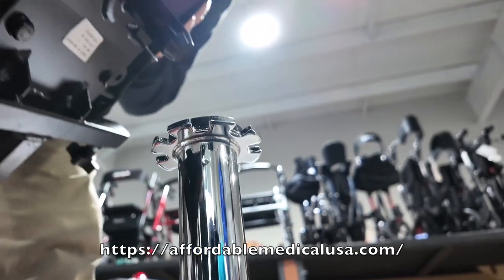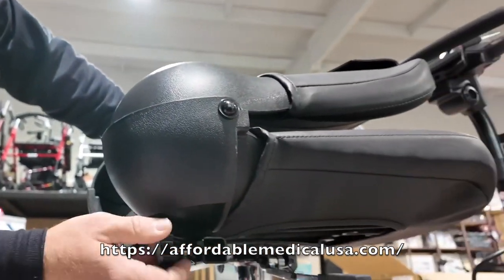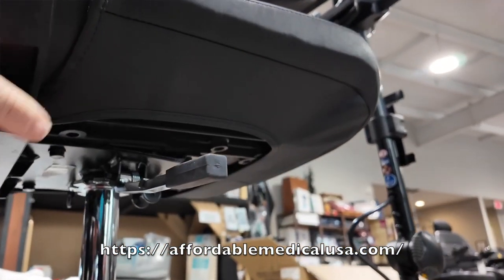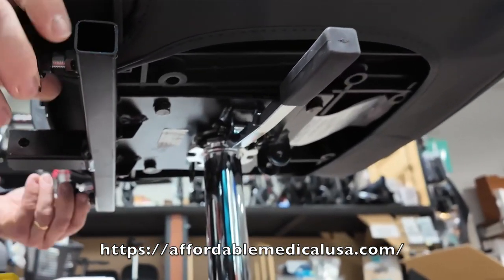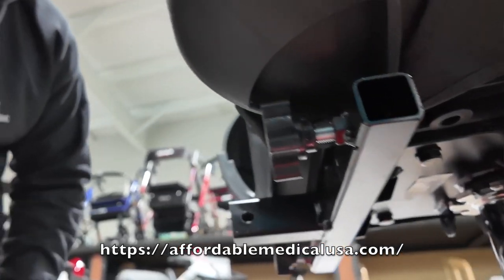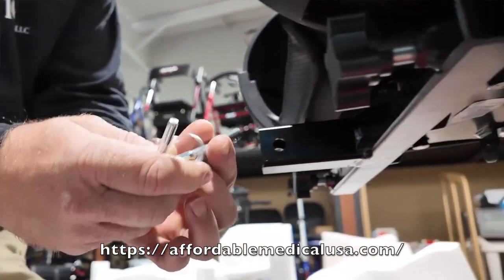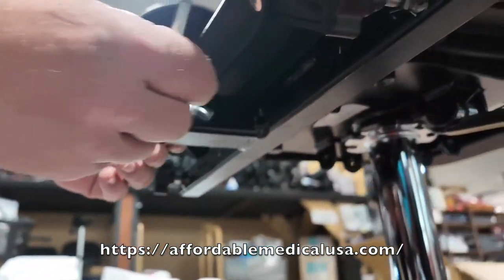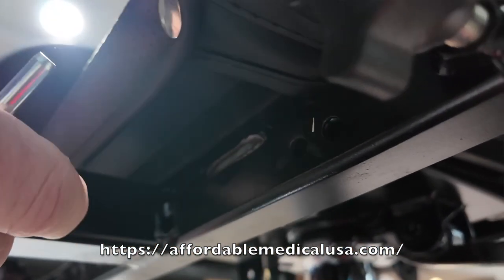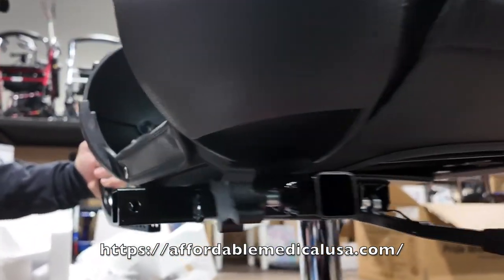Back this out a little bit and go back in here. There are two other little pins — if you want to use them, you can. This port at the back holds a basket, oxygen tank holder, or whatever accessory you need.